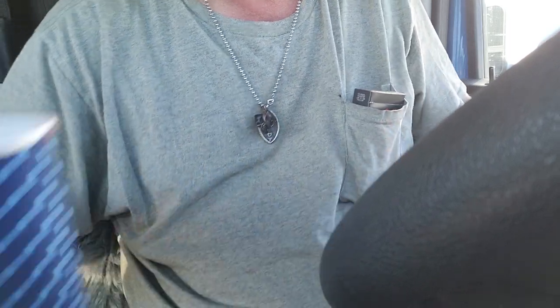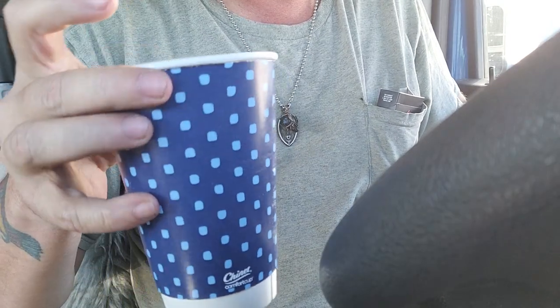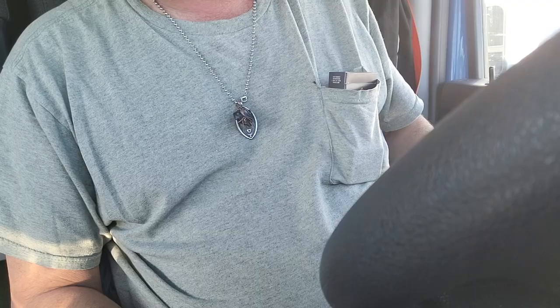Next thing — make a cup of coffee. I made this in my Keurig, it's just water since I already had my coffee this morning. Heat the water up, take the cushion grip, put it in the hot water, and then we're going to sit here and talk for a couple minutes while it softens.